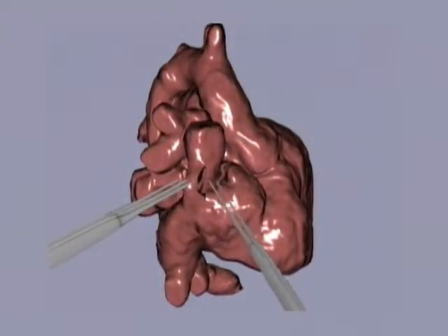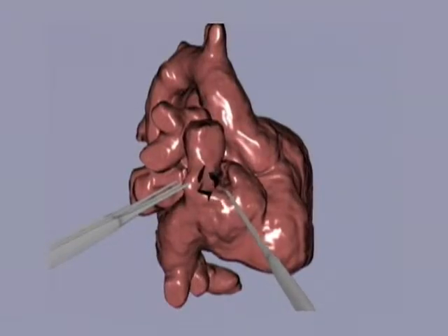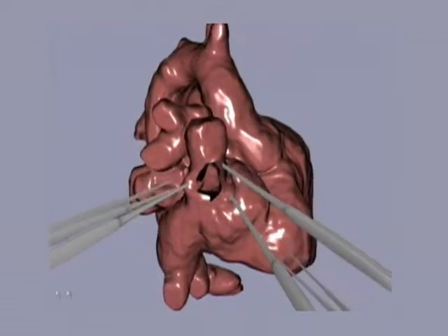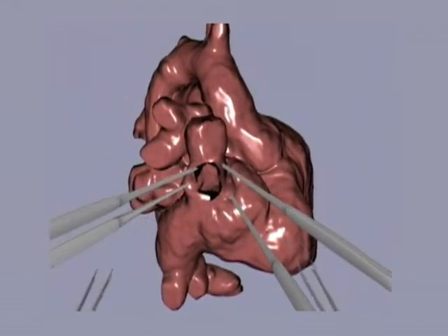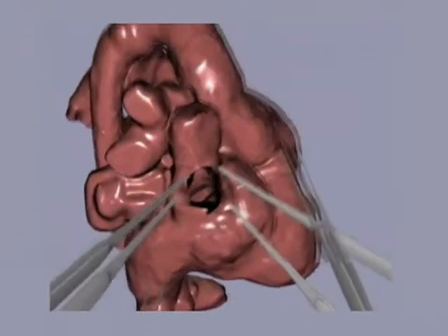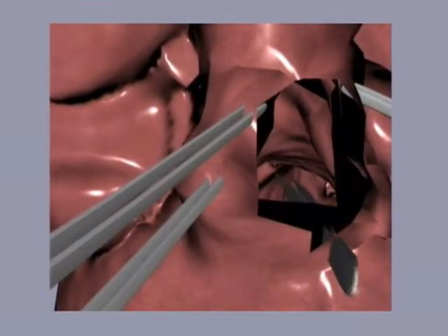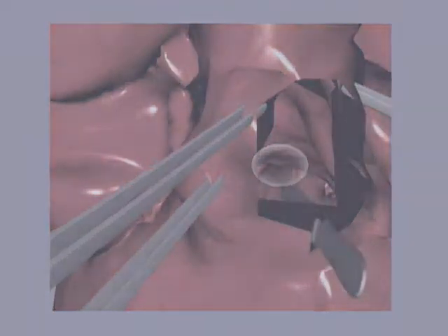A different approach would be to enter through the right atrium. A new incision is made and the tissue pulled aside. We zoom in on the incision point. When grabbing the septum separating the right atrium from the tunnel, an irregularity of the septum is detected. Being in a virtual environment, we can now move inside the atrium to get a closer look at the area. A septum defect, which turns out to be the smaller of the two, is located.